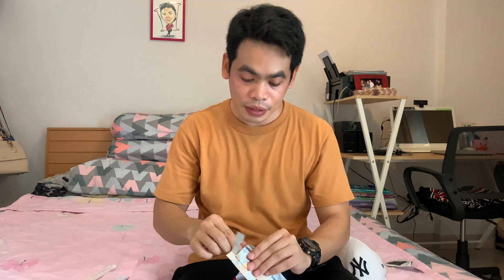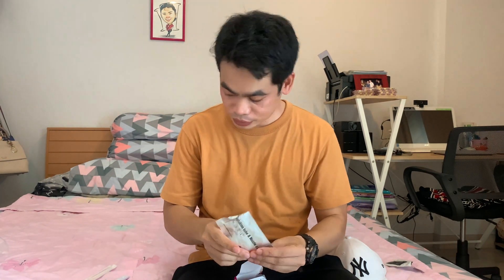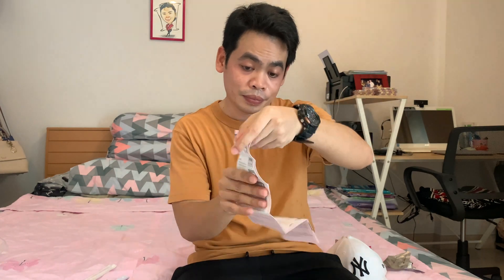Okay, this one is the nozzle cap. And this one here is the direction on how to use it — it's in Thai by the way. This kit is just 350 baht, or if you convert it to dollars, about 11 dollars.